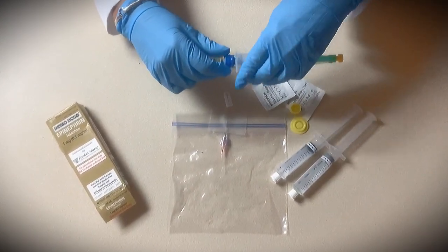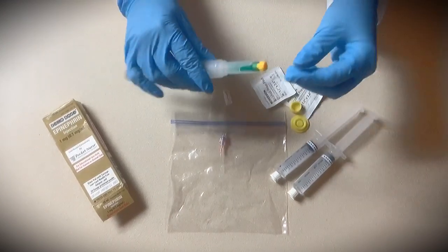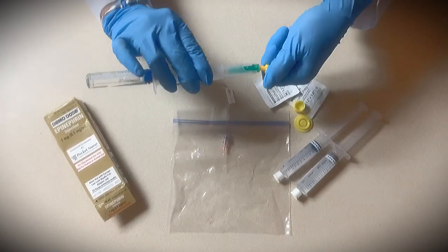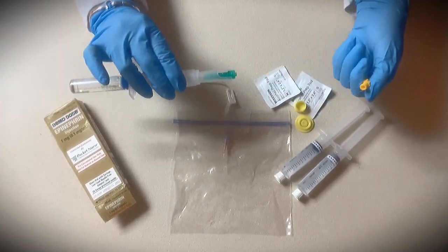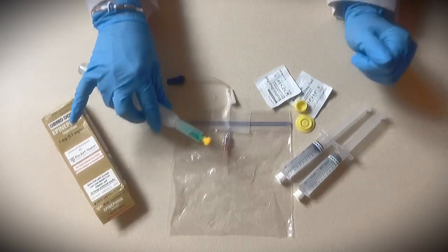You're going to screw it into place. Then the most important thing: you're going to push down and turn counter clockwise to take the yellow part off while still leaving the green part on. Then very gently put that back on.